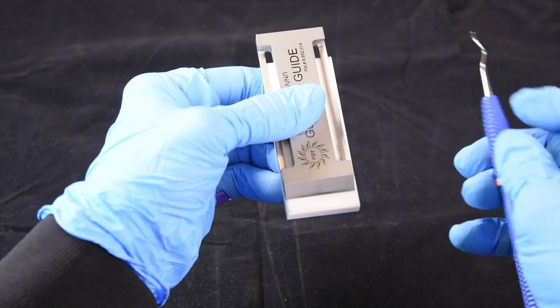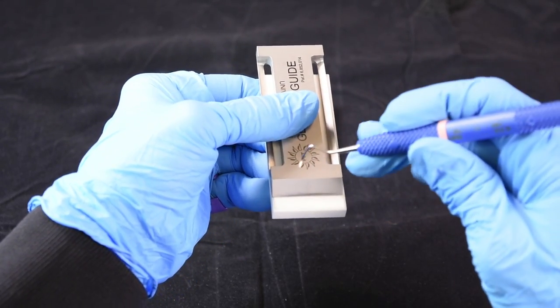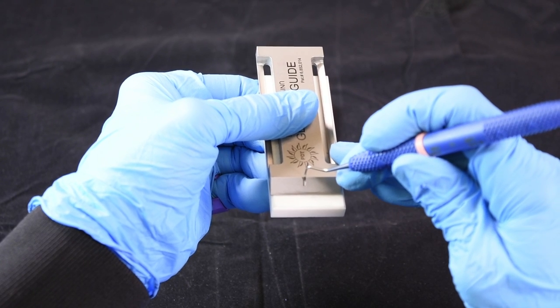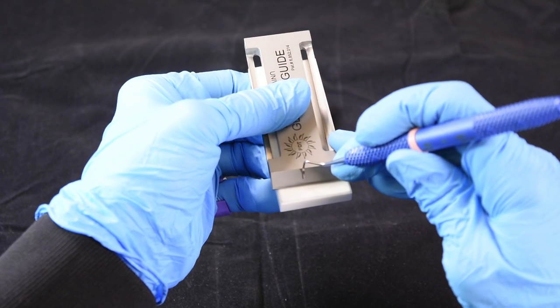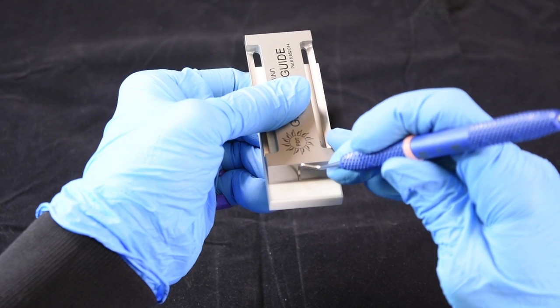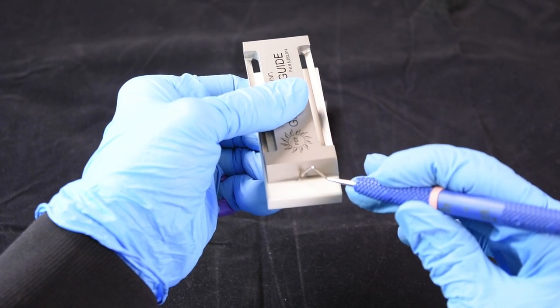Now we're going to sharpen the toe, the back of the blade against the angulation, drop to the stone, and roll.